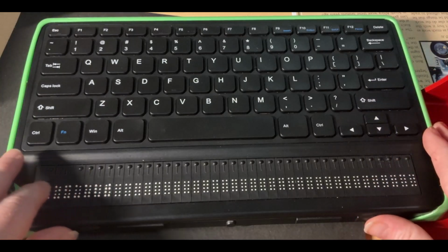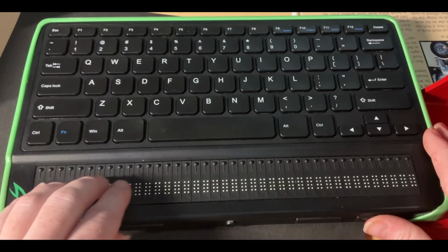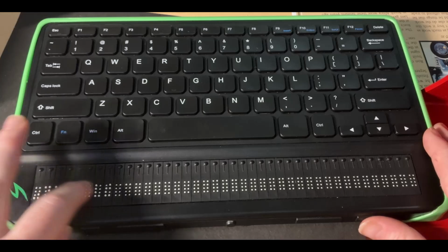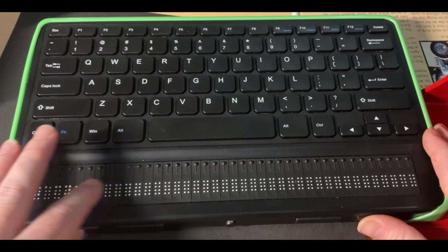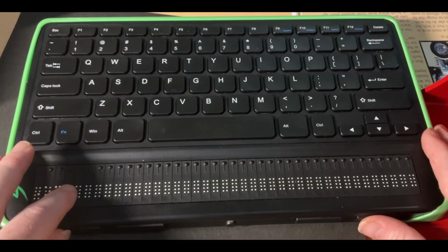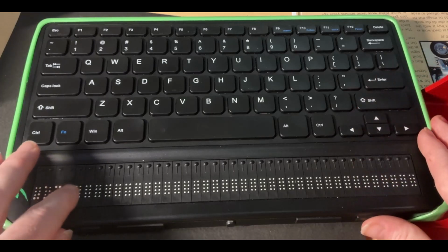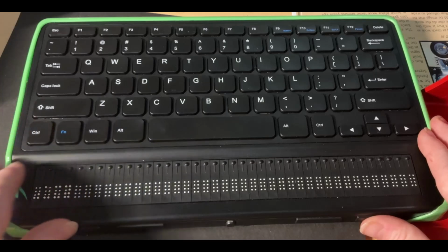And then now I'm right back in my list of Braille profiles, but guess what? I have the word default, which is underlined still. And I'm going to press my next thumb key. Here's my name, Amy, but it's not underlined. That means the profile that I just created is not selected. So to select it, I'm going to press enter. And now it's underlined. It's kind of hard to tell because the name's kind of short.